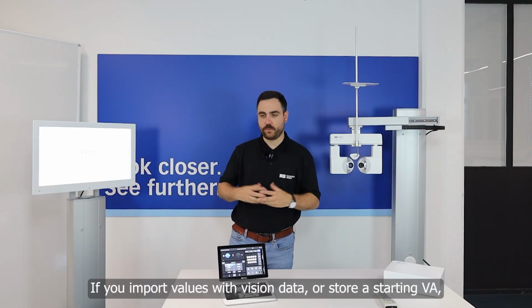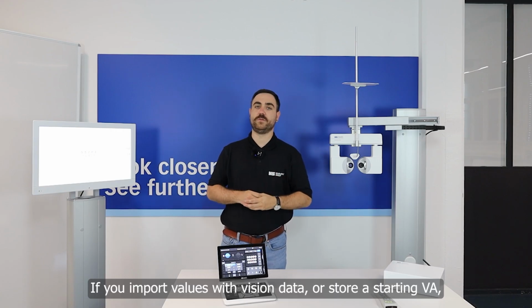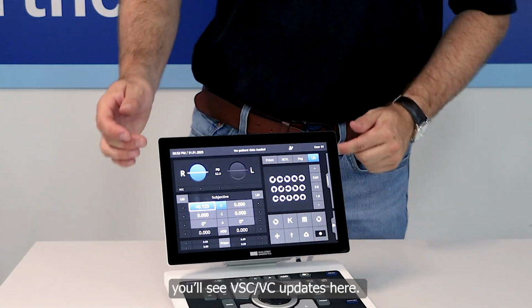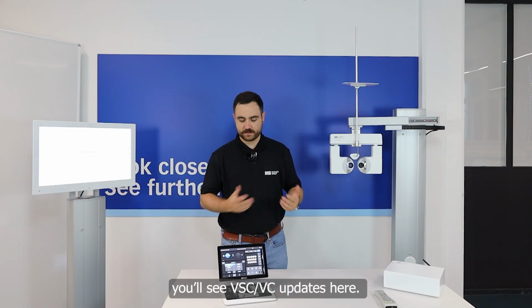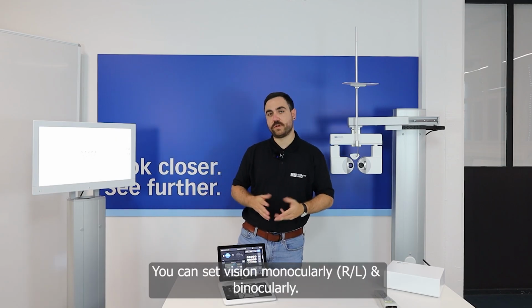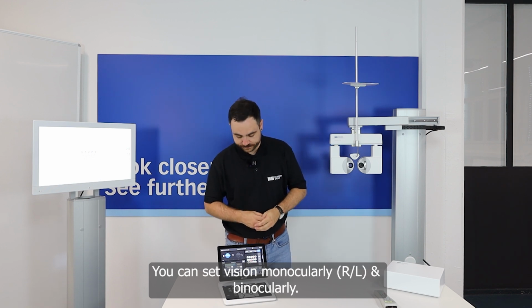Under it, you can see here, currently it's VSC, so vision without correction. That means if you import values with a vision, you will see it here, or your start vision you can save there. If I made any changes, now you see it switched into vision with correction, and you can set the vision monocular for the right, left eye and also binocular.